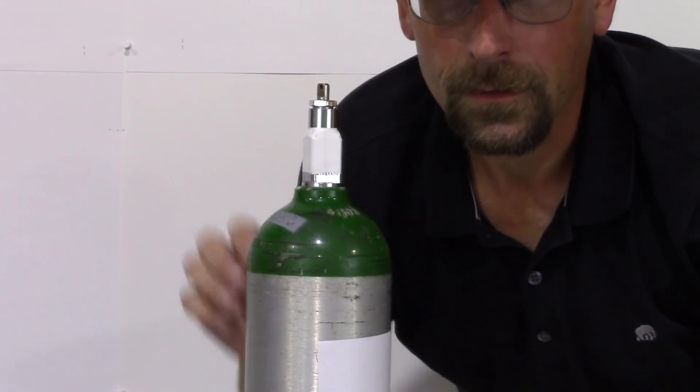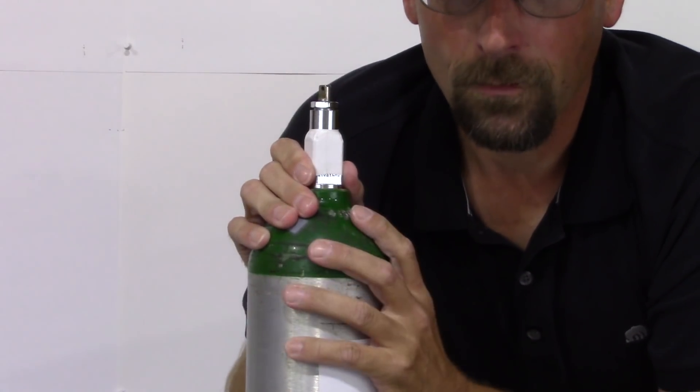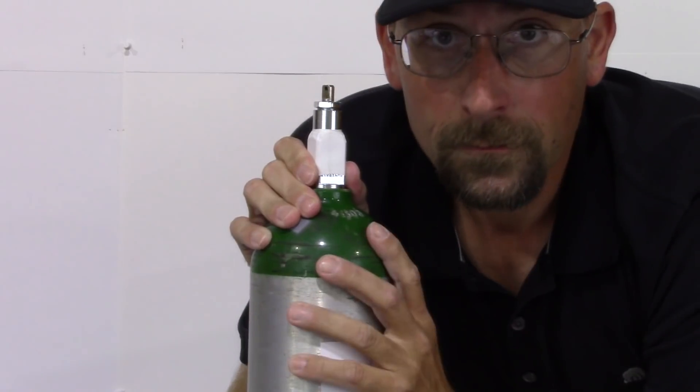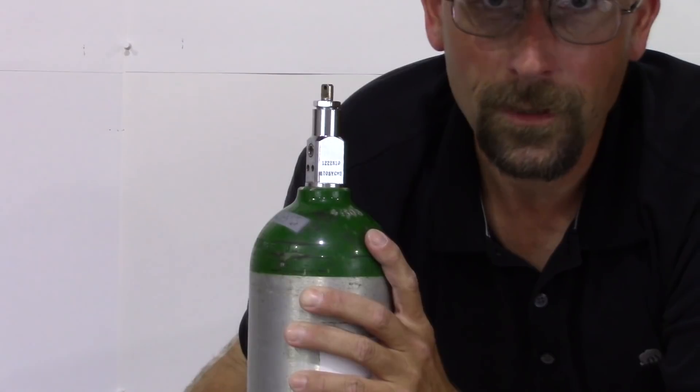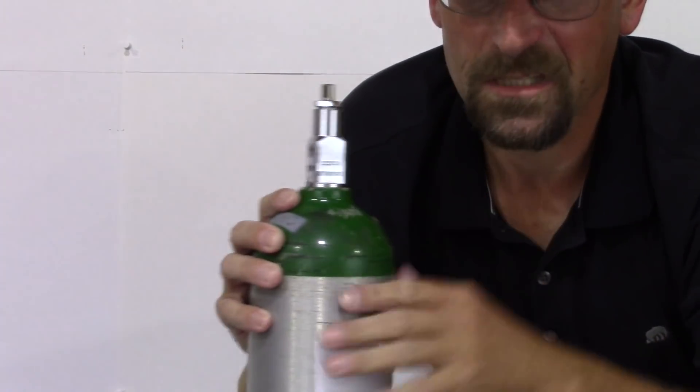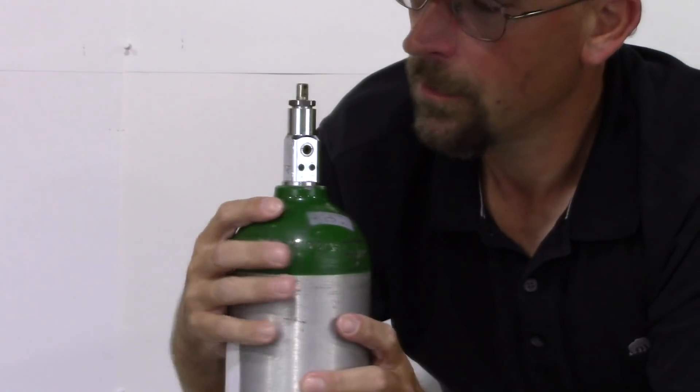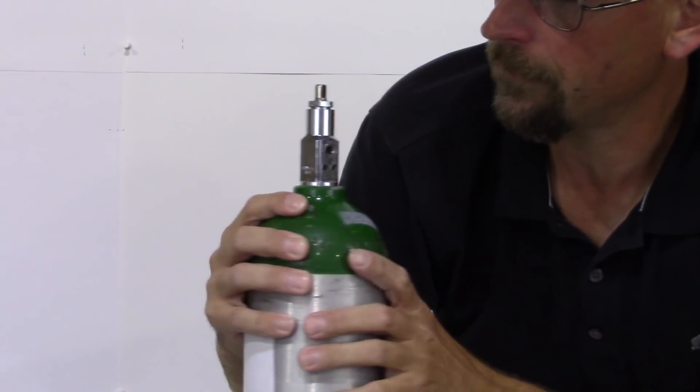Essentially, when you see one of these tanks with the white tape, it's full. So let's check this out. Actually, that just slipped right off. Sometimes the tape is tighter than others. That's fine. Usually just take a little knife or pen or something and just flick it off.